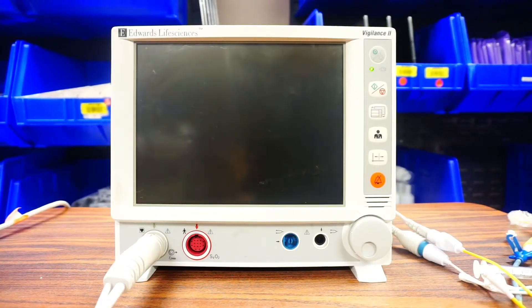I'm going to show you how to set up your SWAN when you are not able to use the Hemisphere and instead need to use the Vigilance 2. Reasons why you would use the Vigilance 2 instead of the Hemisphere are if the Hemisphere is currently being used or if it's broken. If not, then you're going to go for your Vigilance 2.